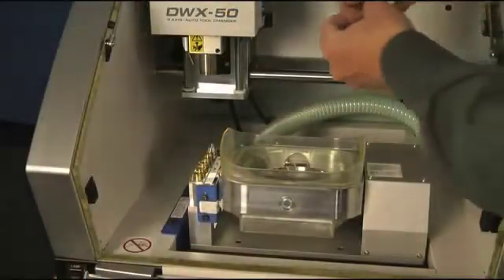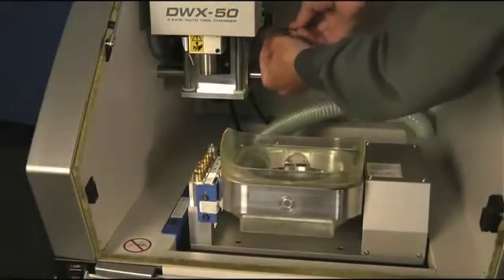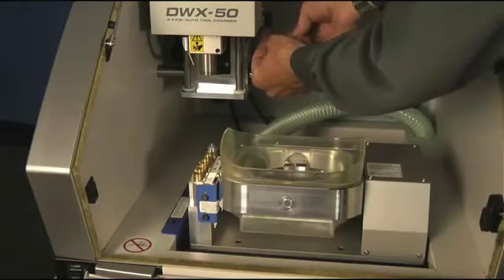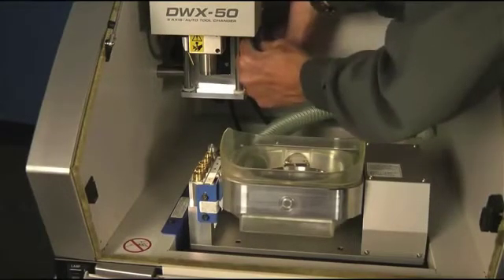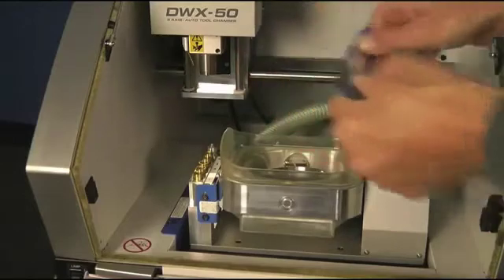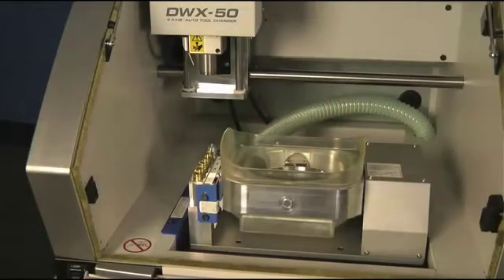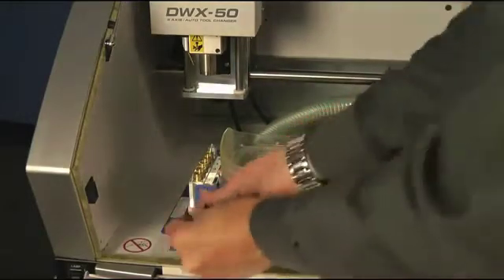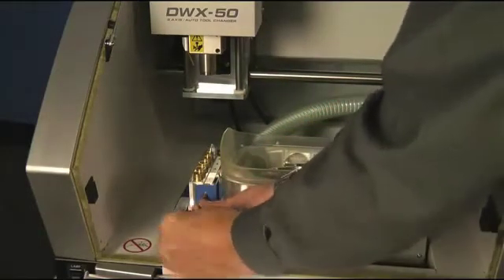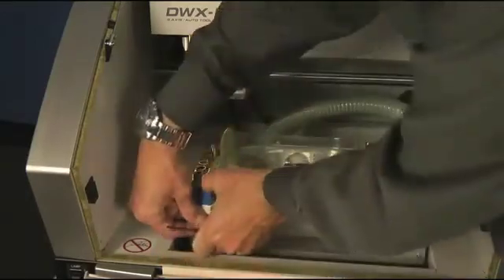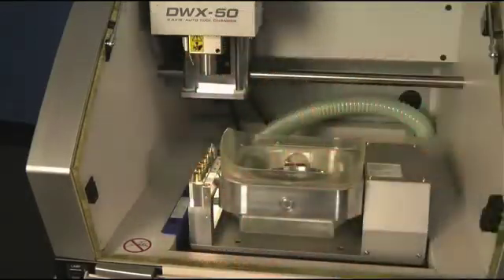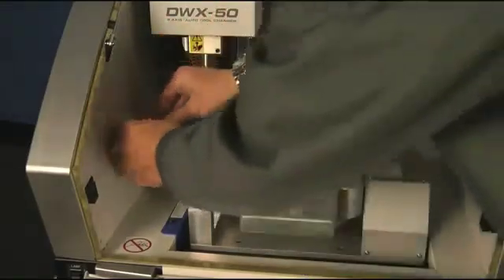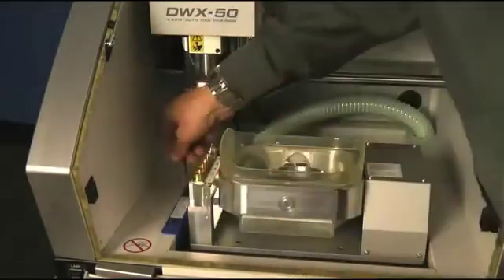Once you've placed your DWX 50 in its resting position, locate the hex wrench that comes with the accessories and begin to remove the retaining screws holding the blue shipping brackets in place. Be sure to keep track of these brackets. You will need them if you ever move the machine in order to keep the machine from damage during shipping.